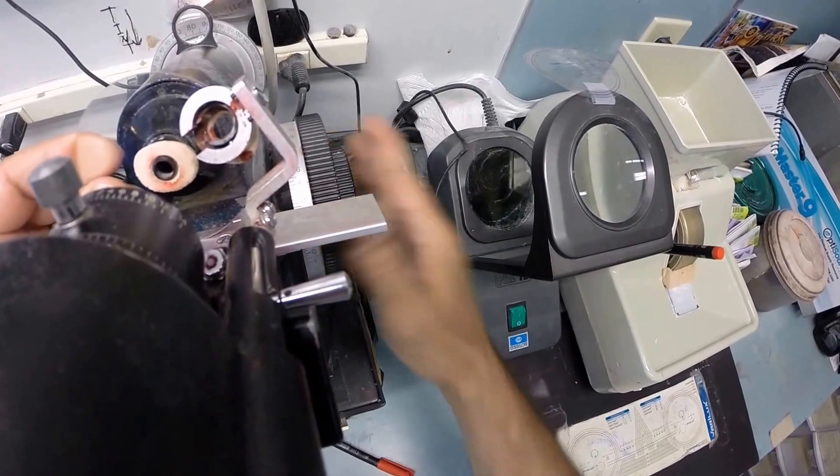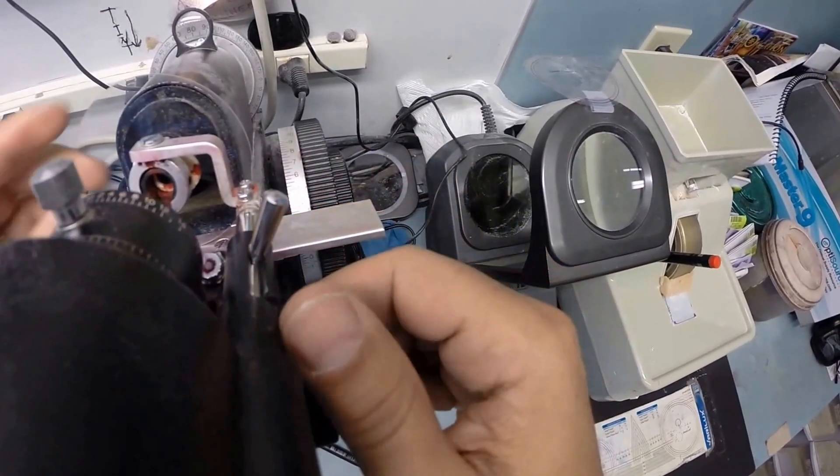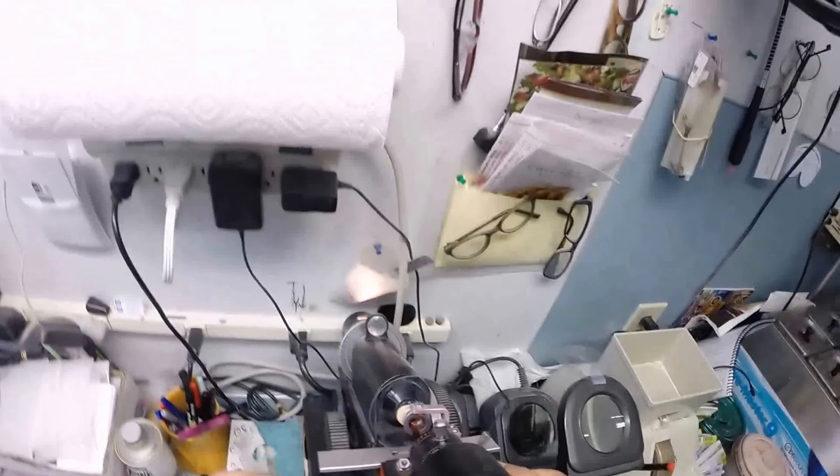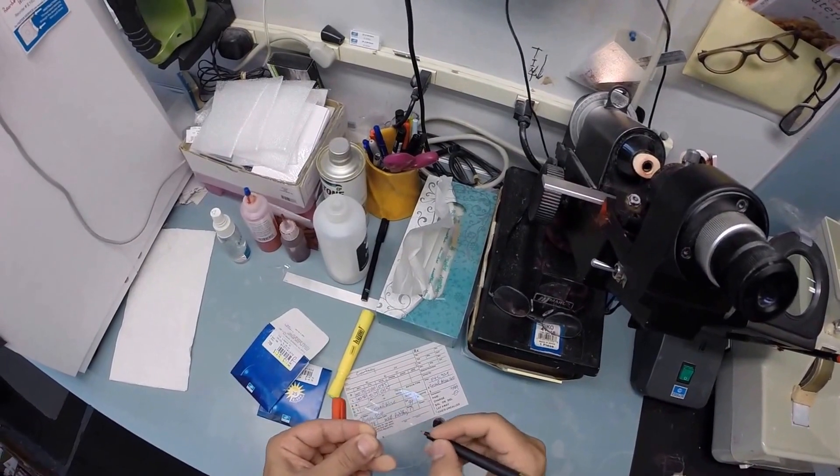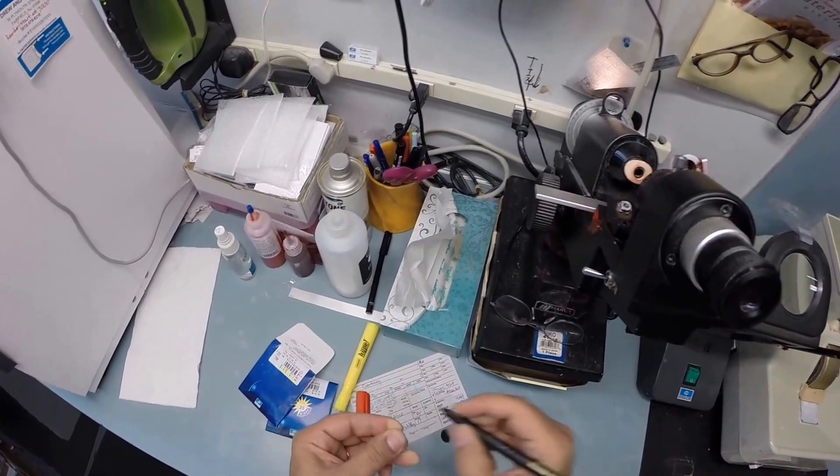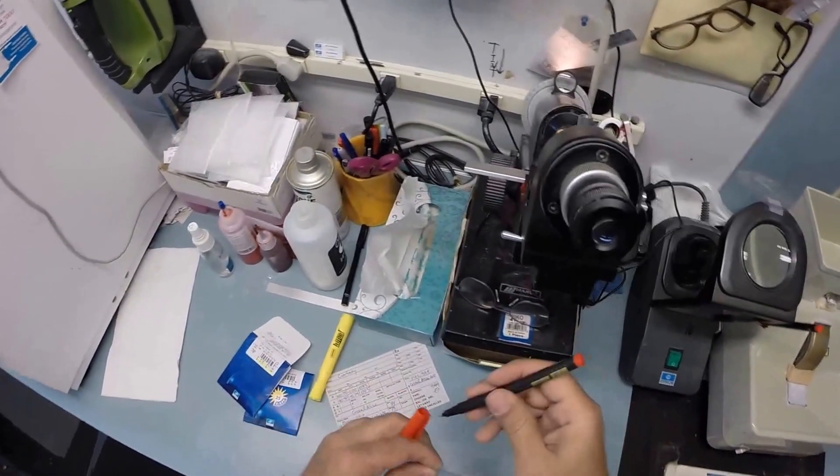Find the optical center of your lens. Check your astigmatism correction. All that lines up good and I am going to put three dots on your lenses. Some of which may be too light for you to see so I'm going to darken these. One, two, and ocho. And we're going to mark this one the right lens.